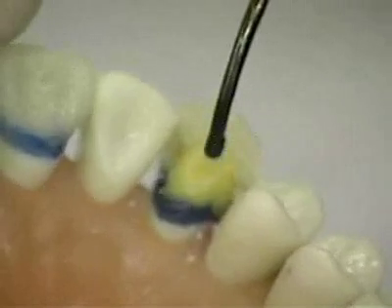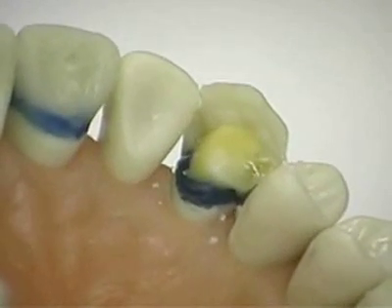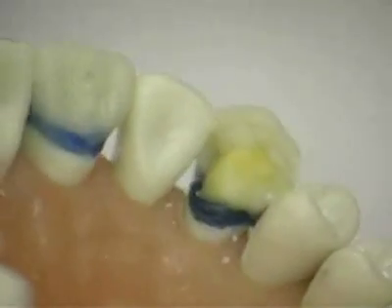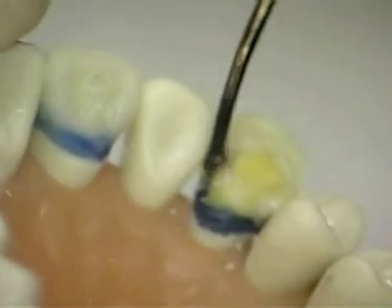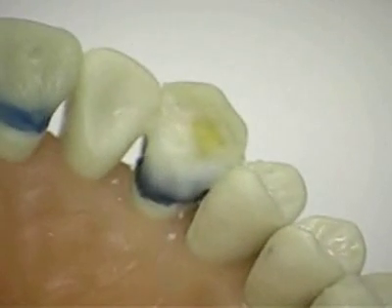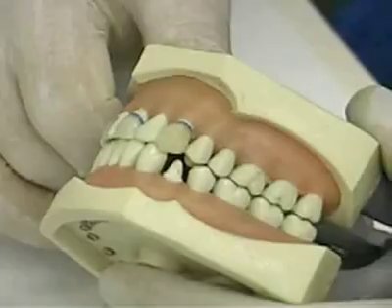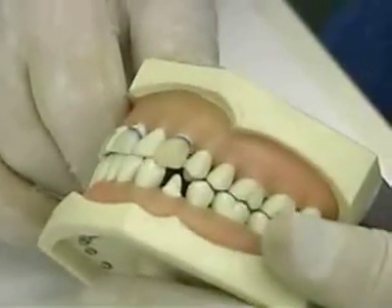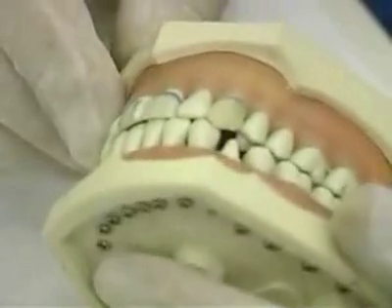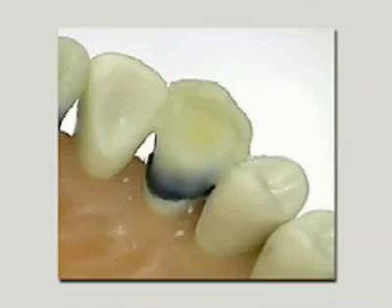Next, concentrate on functional considerations in restoring the lingual aspect. Again, start with the distal and mesial marginal ridges, aligning them with the marginal ridges of the adjacent teeth so that there is uniformity and continuity. Check periodically with the opposing model to gauge how much room is available. After opening and closing the model, there should be an indent in the wax that was just placed. If there is no indent, then the wax was not placed high enough.